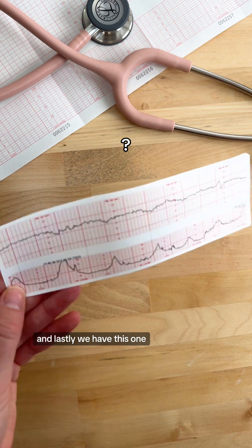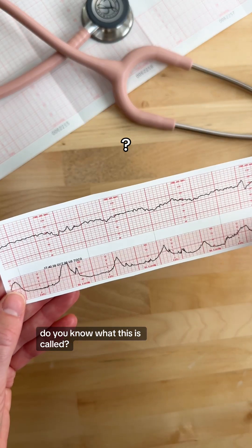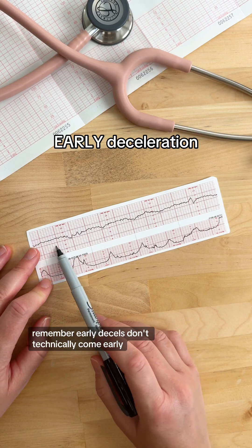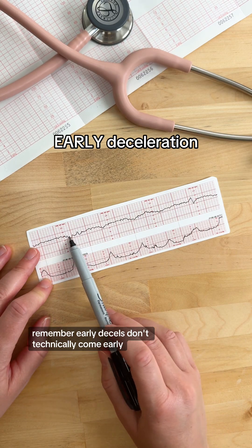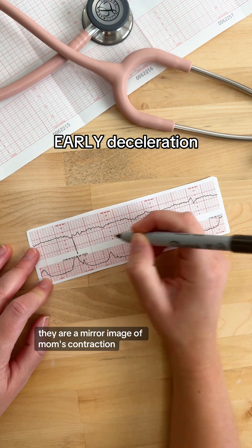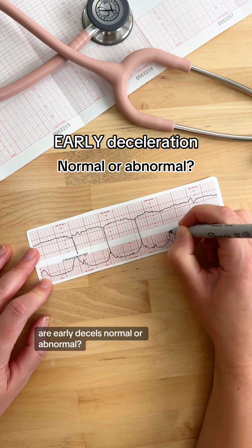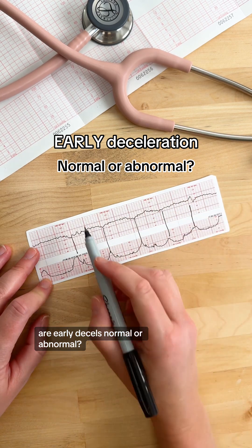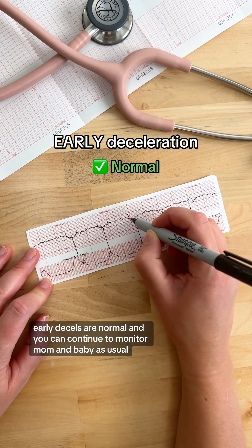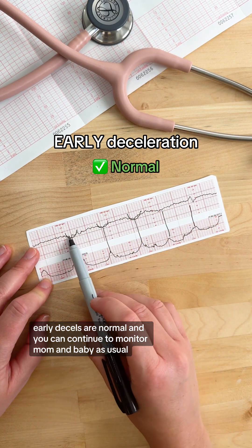And lastly, we have this one — do you know what this is called? This is an early deceleration. Remember, early decelerations don't technically come early; they are a mirror image of mom's contraction. Are early decelerations normal or abnormal? Early decelerations are normal, and you can continue to monitor mom and baby as usual.